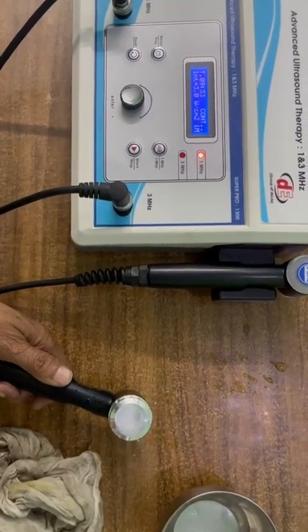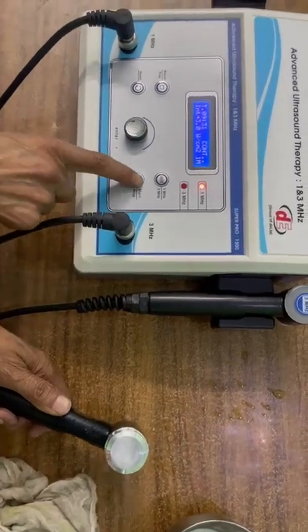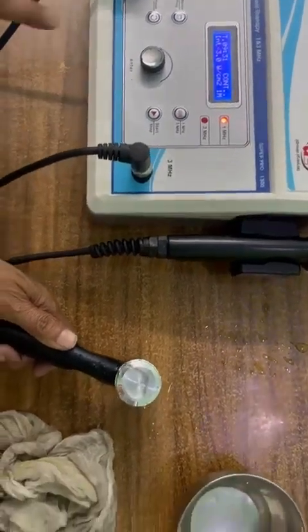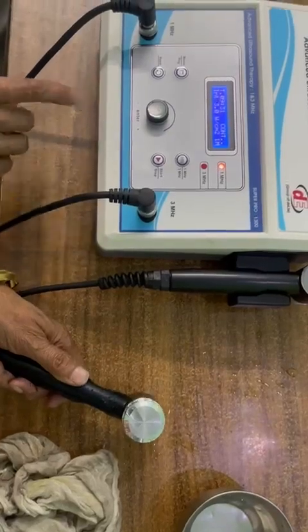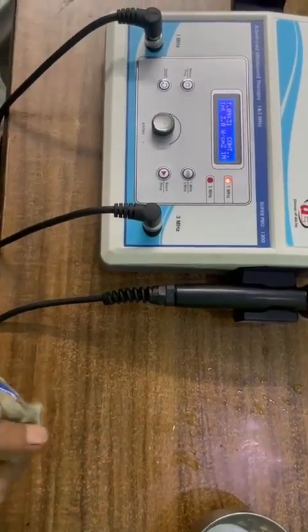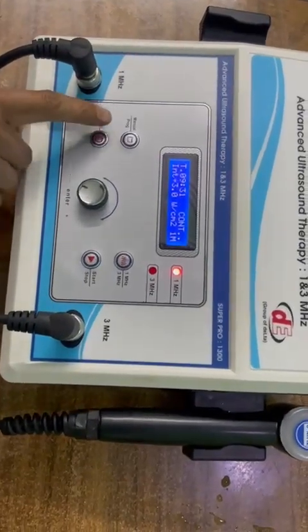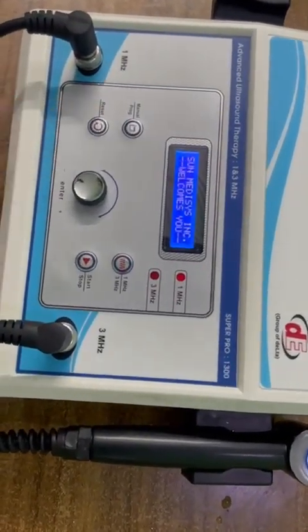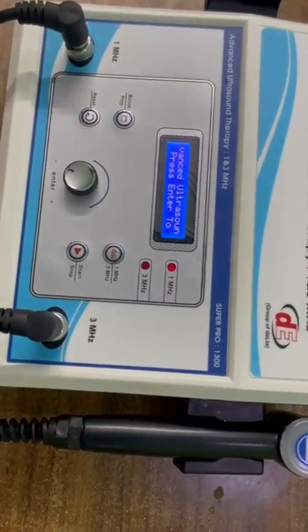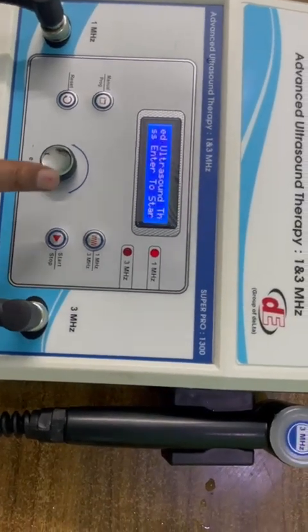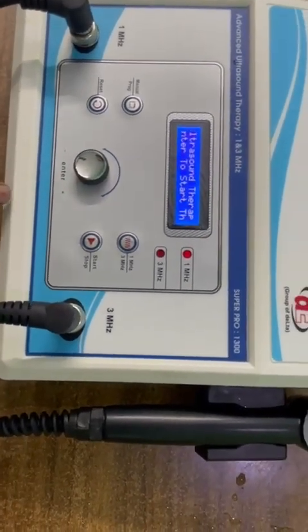Now we stop it. Stop. Now you have to reset if you want to change the program or again to set the therapy. Reset button is here. You can press reset button. Now machine is coming on operating mode. Now we want to test in program.